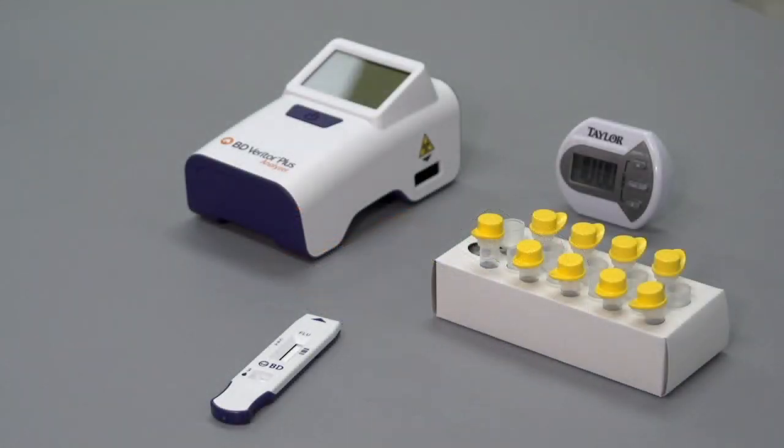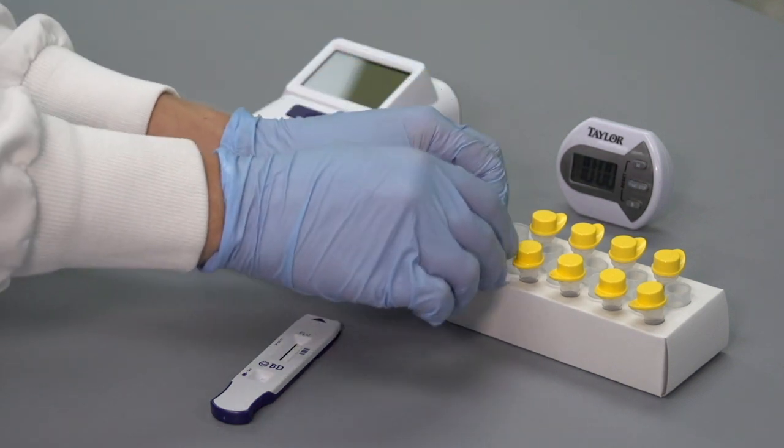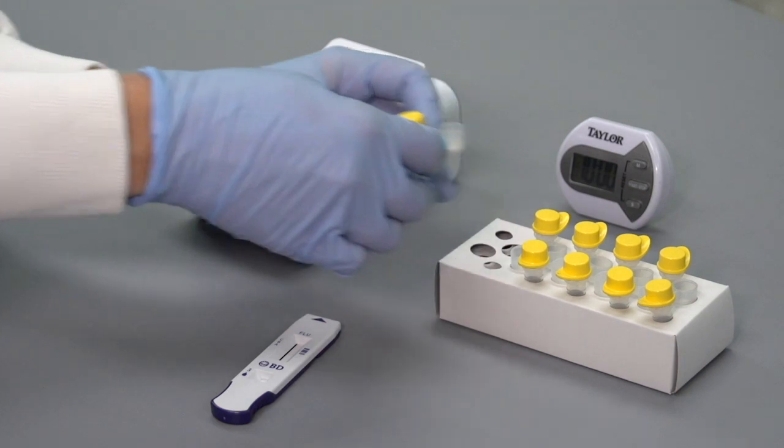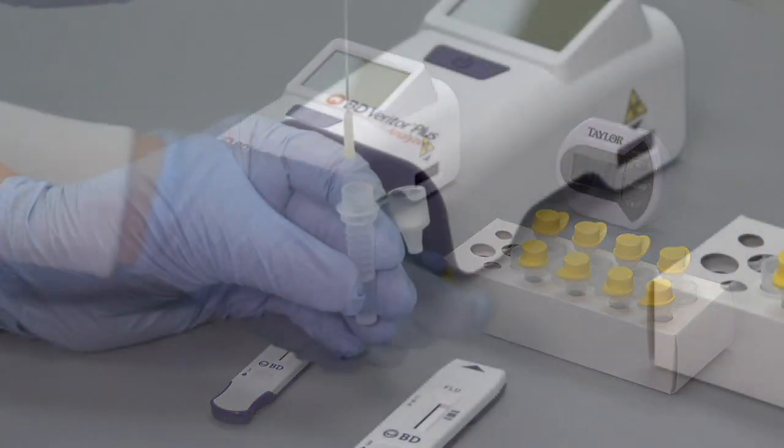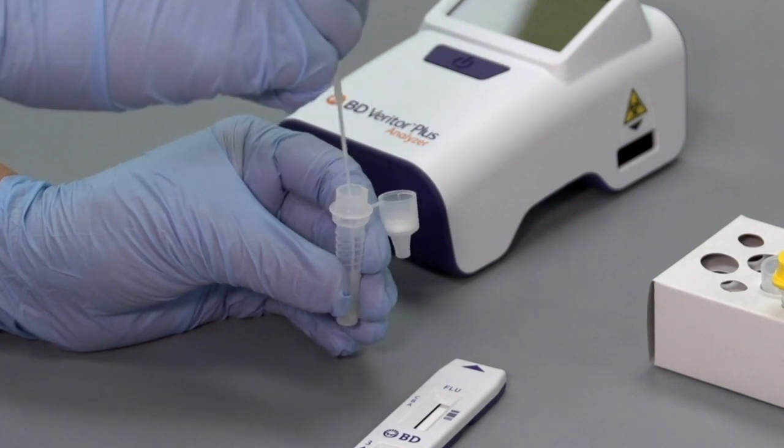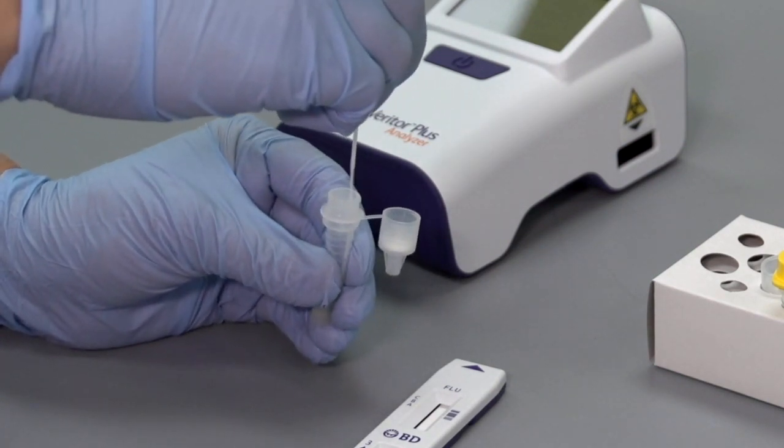The Analyze Now workflow is the same as the original BD Veritor reader. The patient's specimen is prepared according to the BD Veritor assay product package insert instructions. The assay timing step is completed prior to inserting the test device for interpretation by the analyzer.